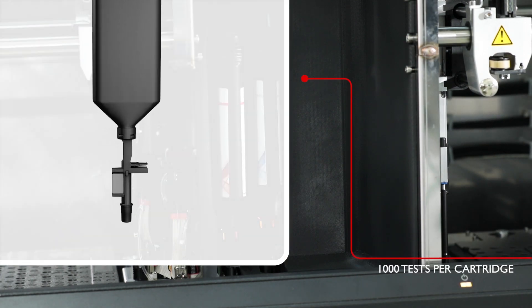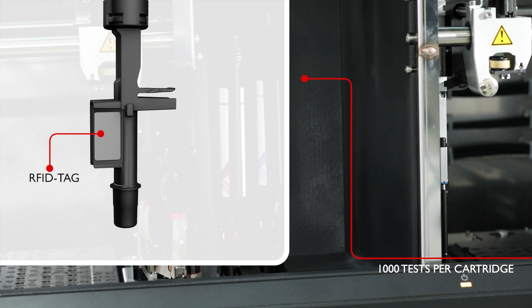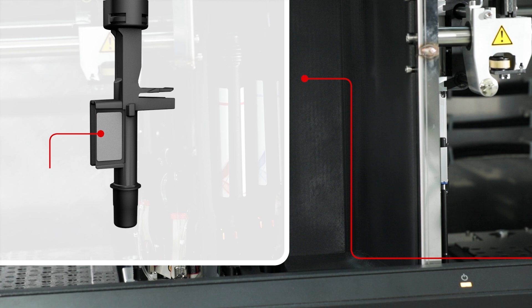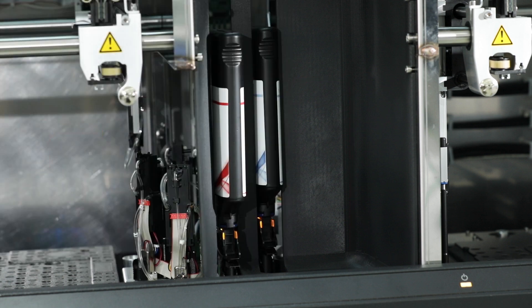The trigger cartridges use rewritable RFID tags to monitor usage and provide important reagent lot information, securing and simplifying reagent management.